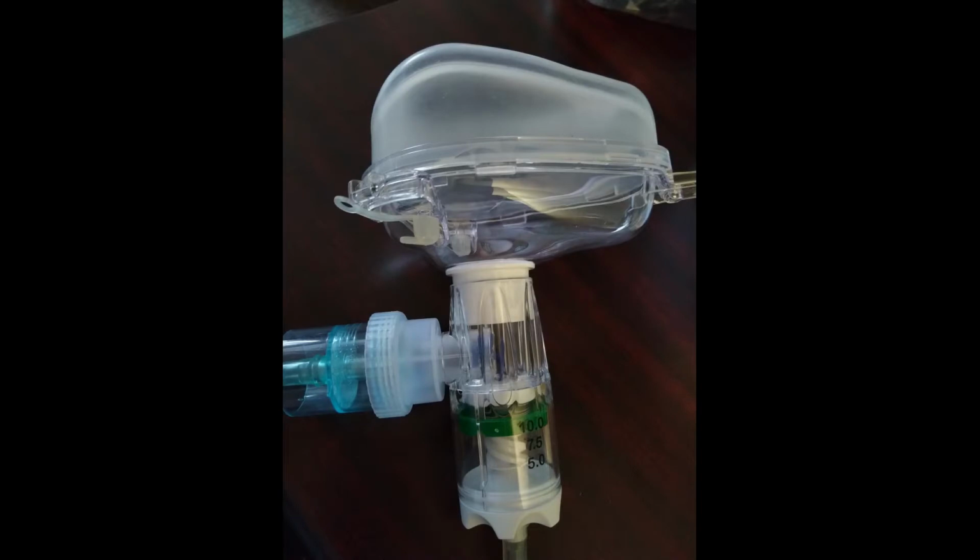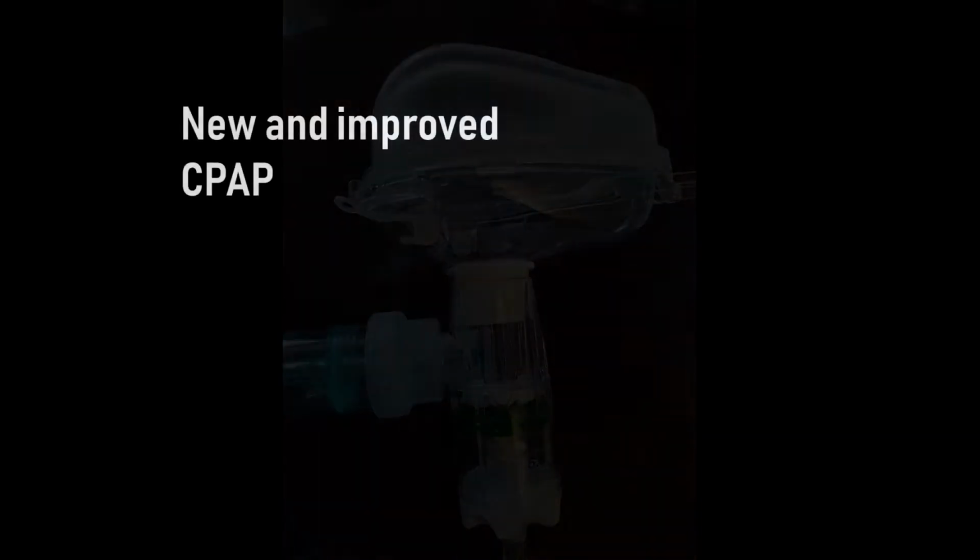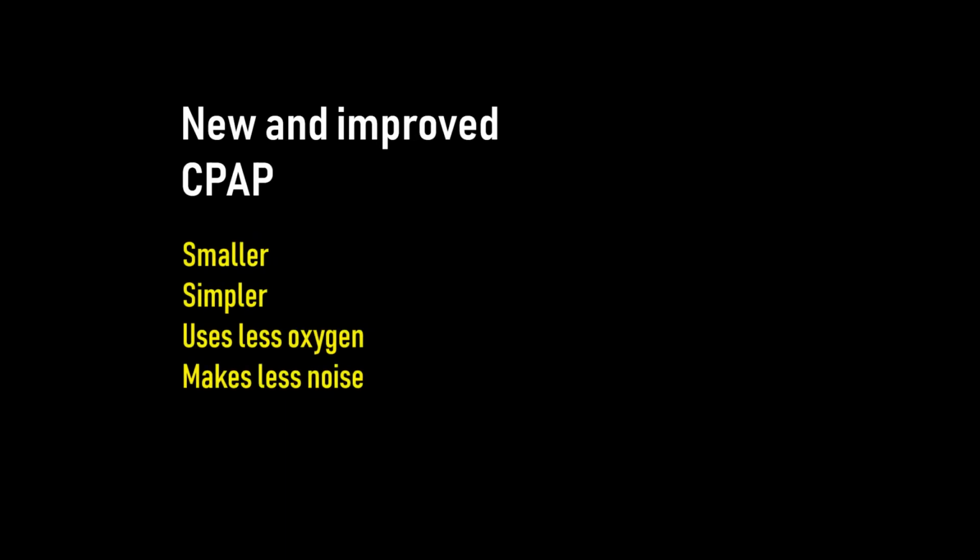We have an improved version of the CPAP device that you'll start seeing out in the field here shortly. It addresses a lot of the deficiencies of the current model, and in this video we'll discuss the indications for using it, how you set up and deploy it, and I'll also show you some of the key differences between the current model and the new model.